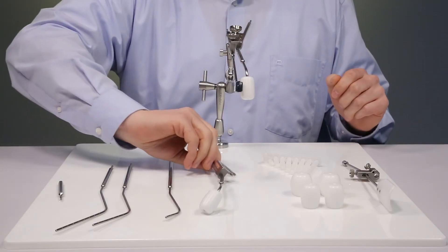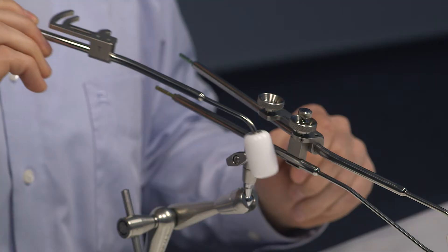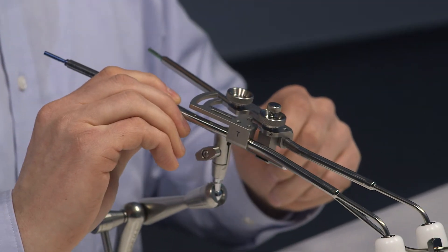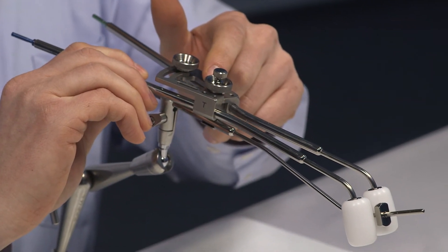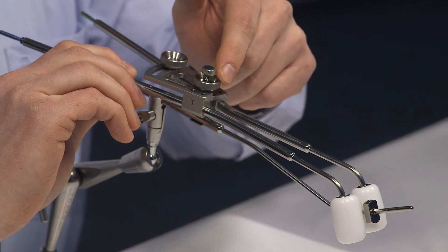Now the left ovoid tube is inserted and clicked into the bracket and fixed with a lower front screw.